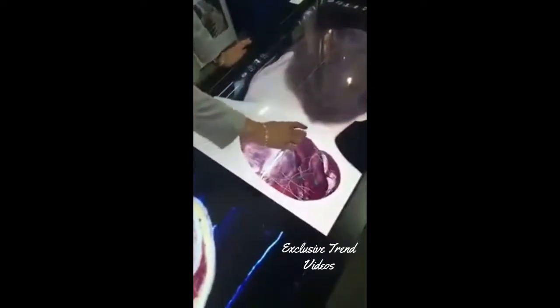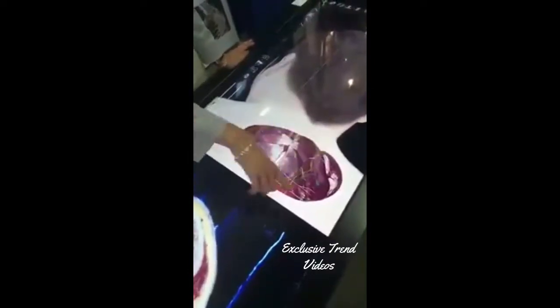To mimic something you find in surgery, you can also do natural cuts. In this case, I have an incision made and you can also see the relationship between the skin, the fat, and other structures. As I showed earlier, you can go ahead and remove structures here as well, and press the undo button.